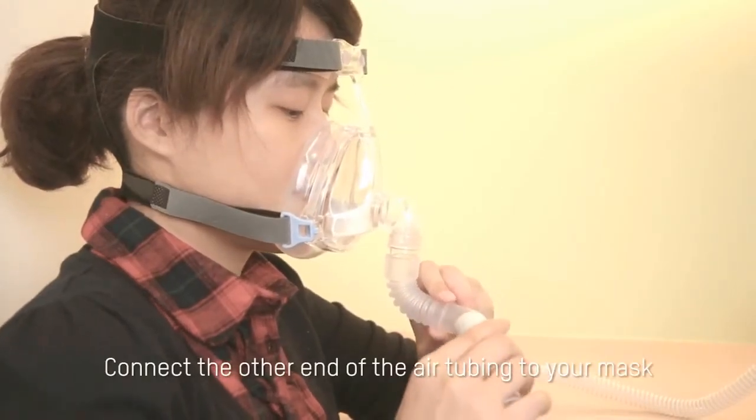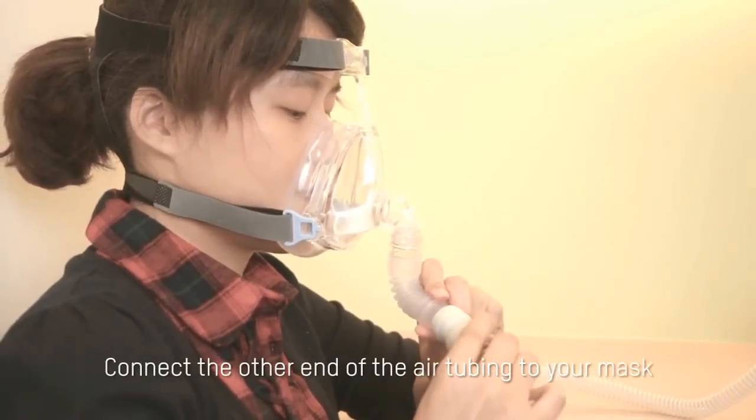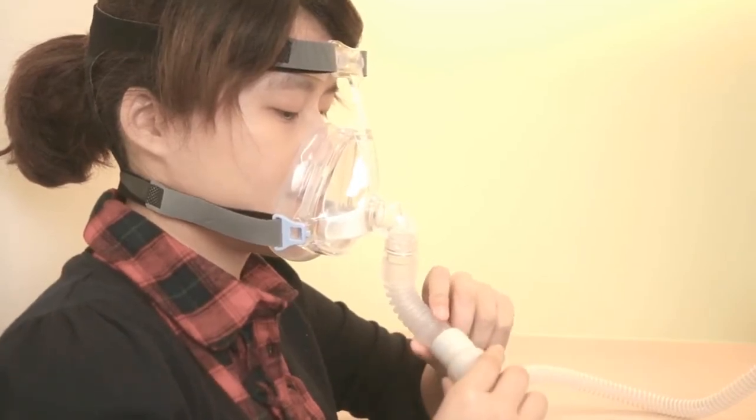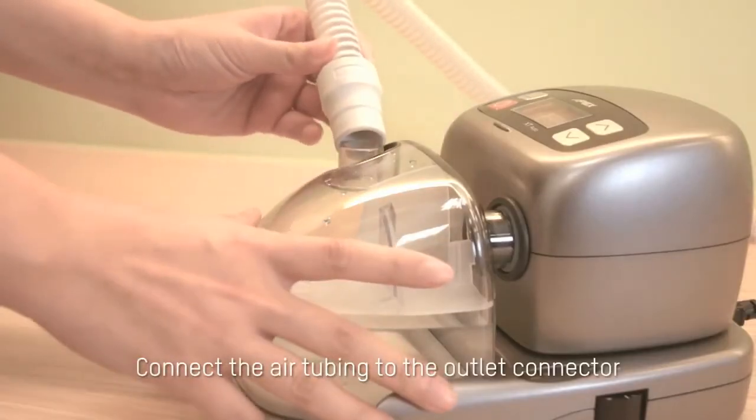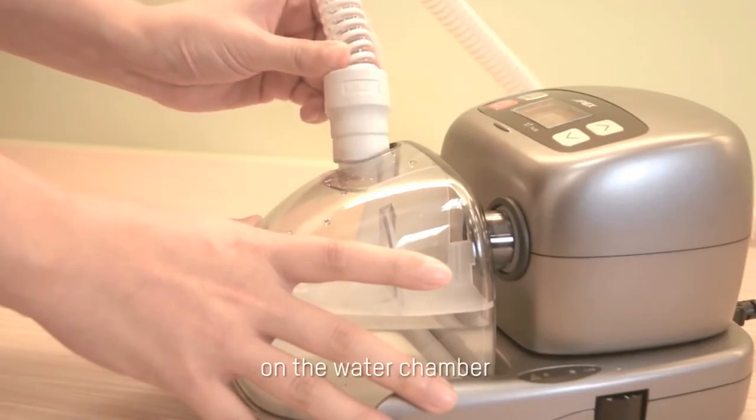Connect the other end of the air tubing to your mask. Connect the air tubing to the outlet connector on the water chamber.